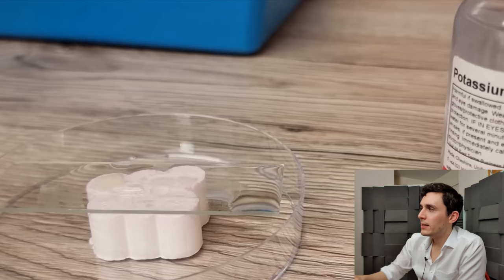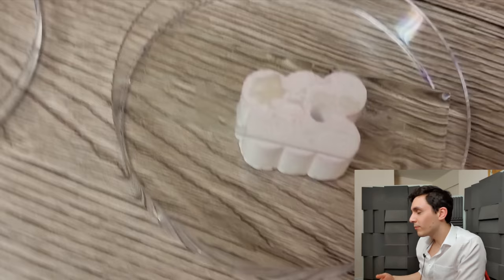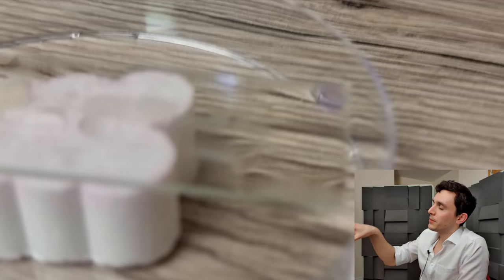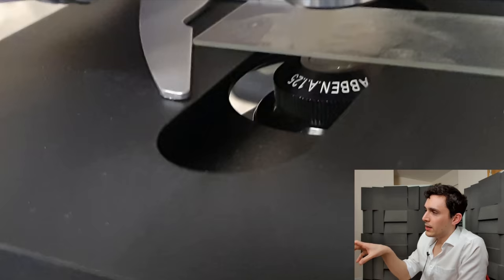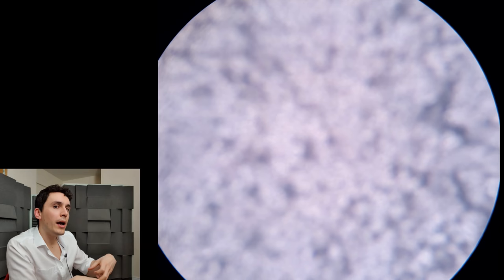The liquid that you see there is potassium hydroxide. You might know it as lye or caustic potash. This is also called a KOH test — K being the chemical symbol for potassium. The potassium hydroxide is going to basically dissolve and melt away all of the dead skin if it's thin enough on the microscope slide, and it's going to leave behind other stuff.